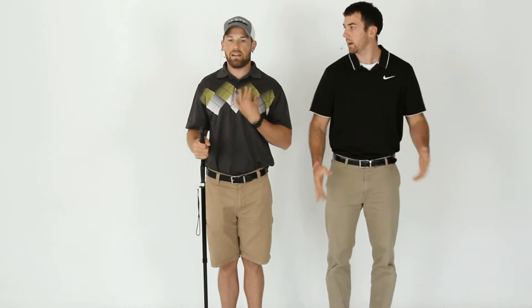On the negative side, it's more like a walking stick than a true cane. You cannot really bear down on it — it puts your elbow at more of an angle, so you're not going to be able to bear down with your triceps, shoulder, or pec. It definitely makes you use your legs more and rely on balance. It does keep you upright though, which is good, because even if you try to lean down, you can't lean nearly as much. It's actually labeled as a walking stick on it as well, so it's marketed as a cane slash walking stick.